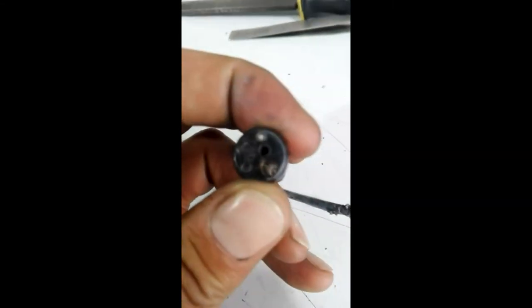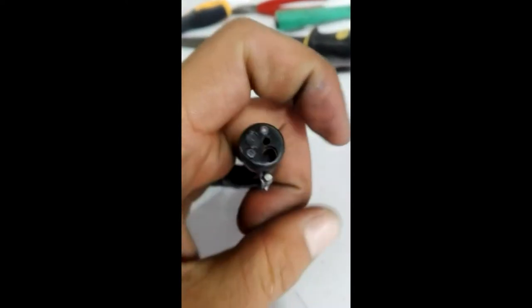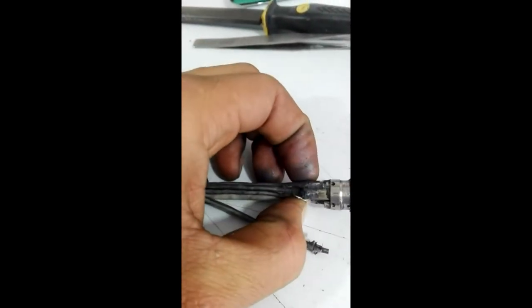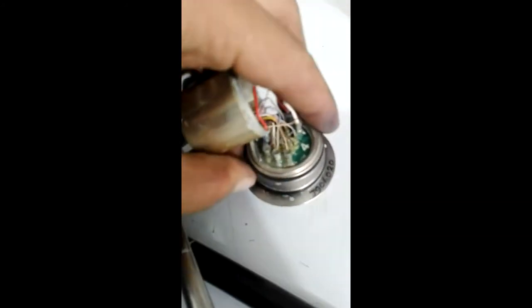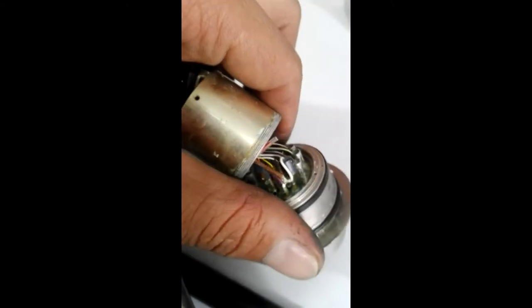A extremidade distal é composta pelo CCD com a guia de luz, tida como um canal de trabalho. Podemos também observar uma guia que se encontra solta. Se verificarmos estes canais, perceberemos na parte inferior que trata-se do canal composto pela câmera, em conjunto com a fibra óptica que é responsável pela emissão de luz. Virando ao outro lado, vemos o condutor ou canal de água, que se encontra na guia de trabalho na mesma extremidade distal. No conector encontramos todos os circuitos eletrônicos responsáveis também pela coleta da imagem iluminada pela luz da fibra óptica.